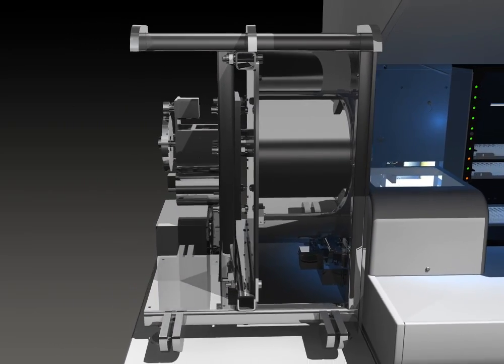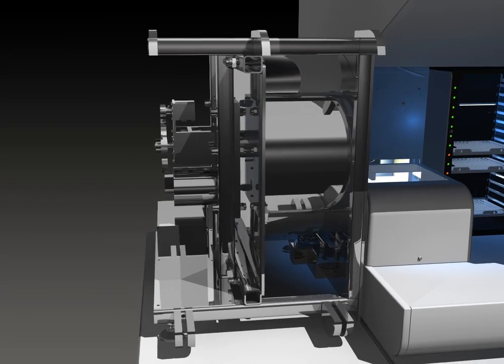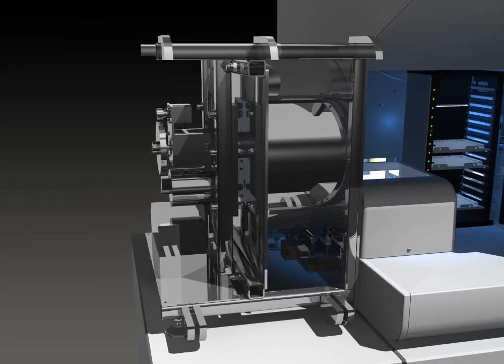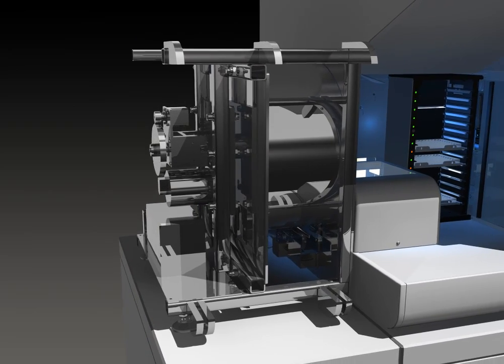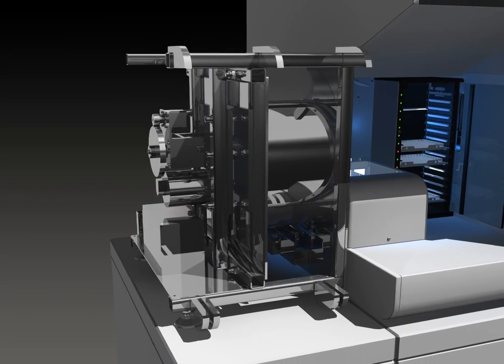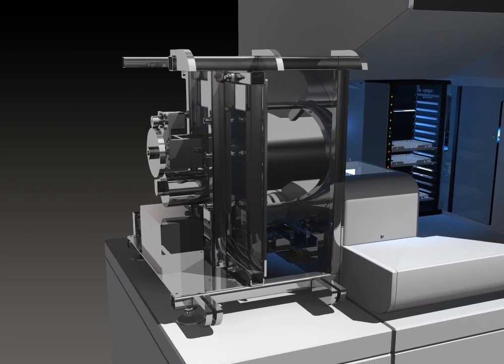All of the centrifugation times on the NEO are less than two minutes, contributing to our quick turnaround time.